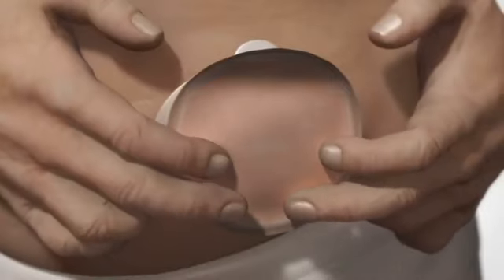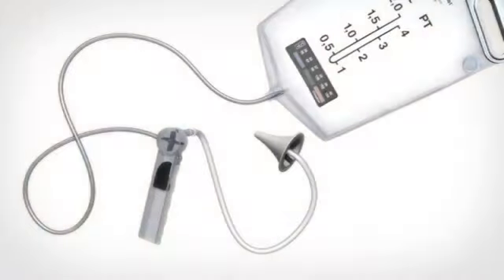Use a mini cap or a mini bag until next time you irrigate. To clean the cone of the irrigation set, detach the tube from the flow regulator. Clean it with soap and water and dry it. The rest of the irrigation set is cleaned with water and dried. Put a piece of folded toilet paper in the irrigation bag to absorb any moisture.